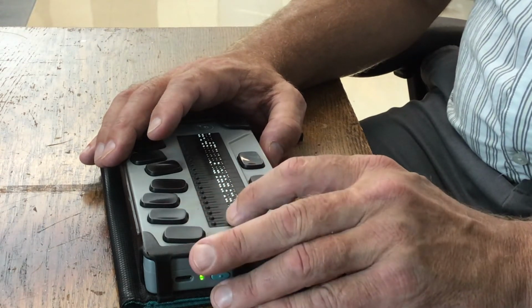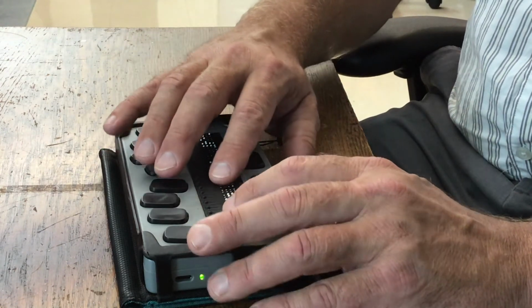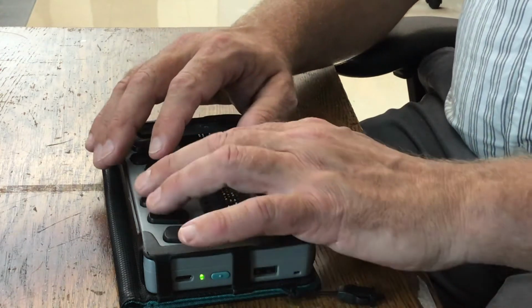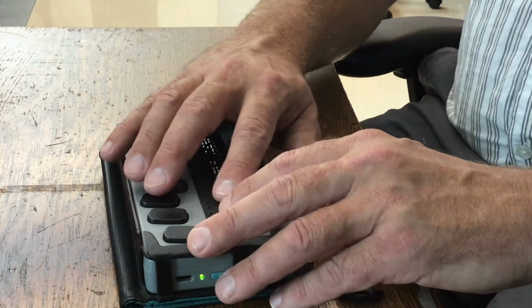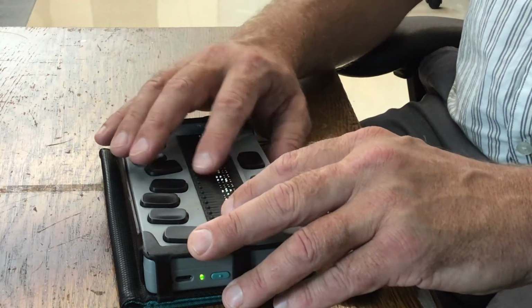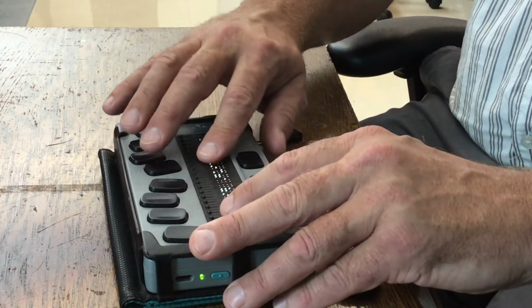The user guide is very helpful. If you open up the user's guide, it reads just like a document. So you do L space to go to the top, and it'll say Chameleon 20 User's Guide. Now, you notice I'm using my left thumb to pan because I reversed my thumb keys in the middle. So I can read with my right hand, and I can scroll with my left.